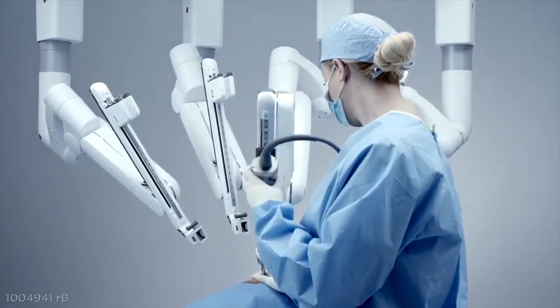The new endoscope is much easier to use. No more draping, calibration, or white balance. You just plug it in and go.